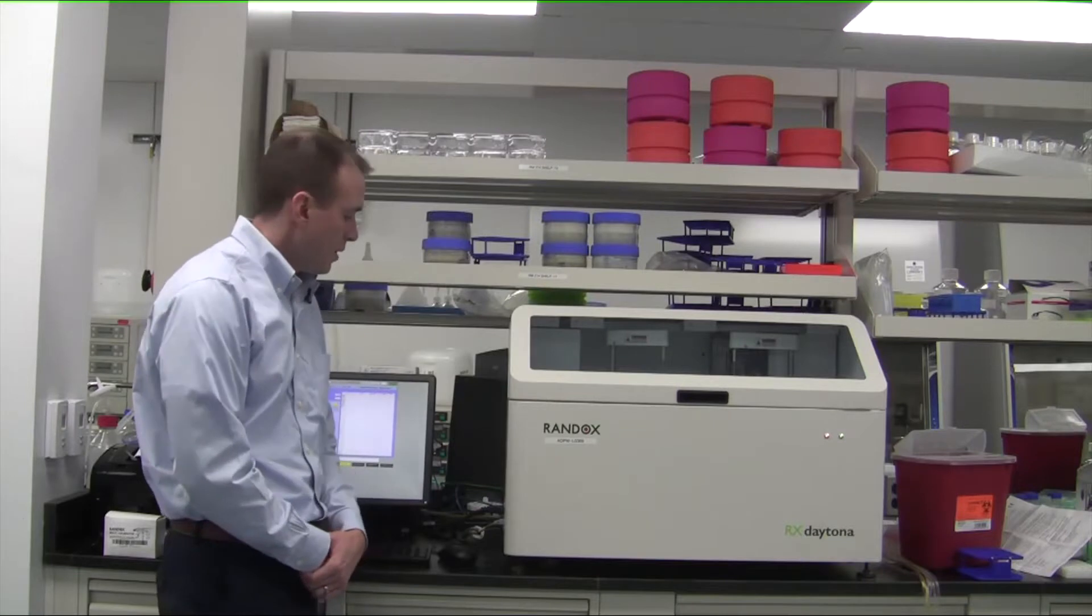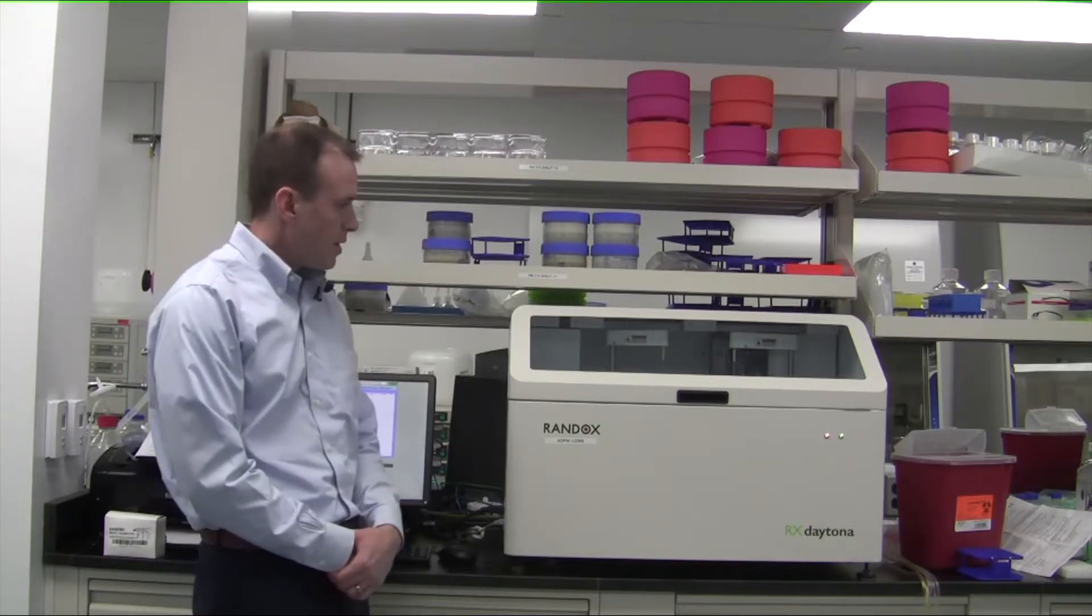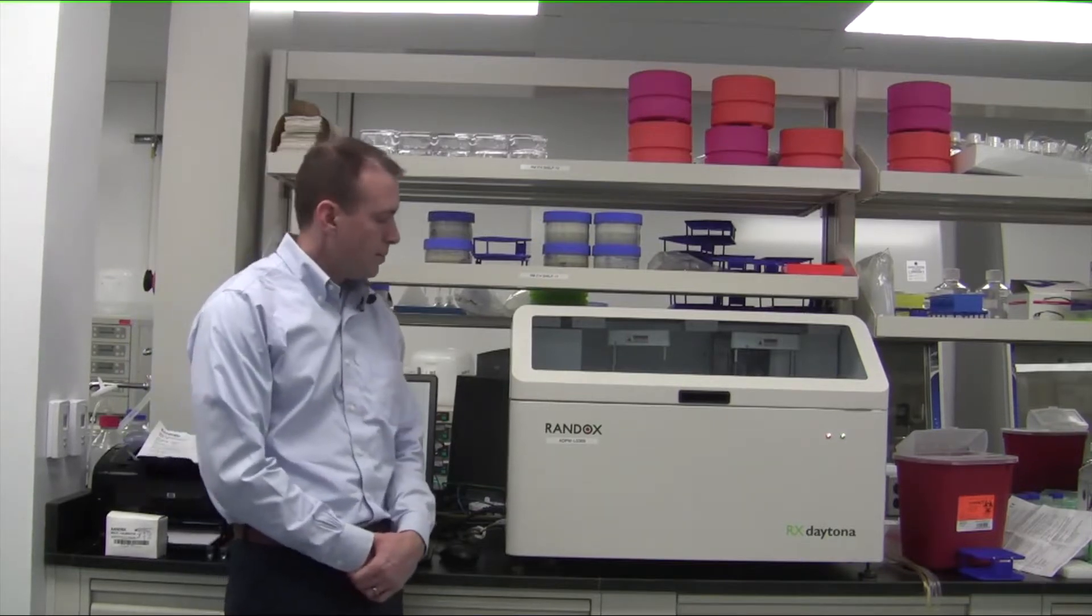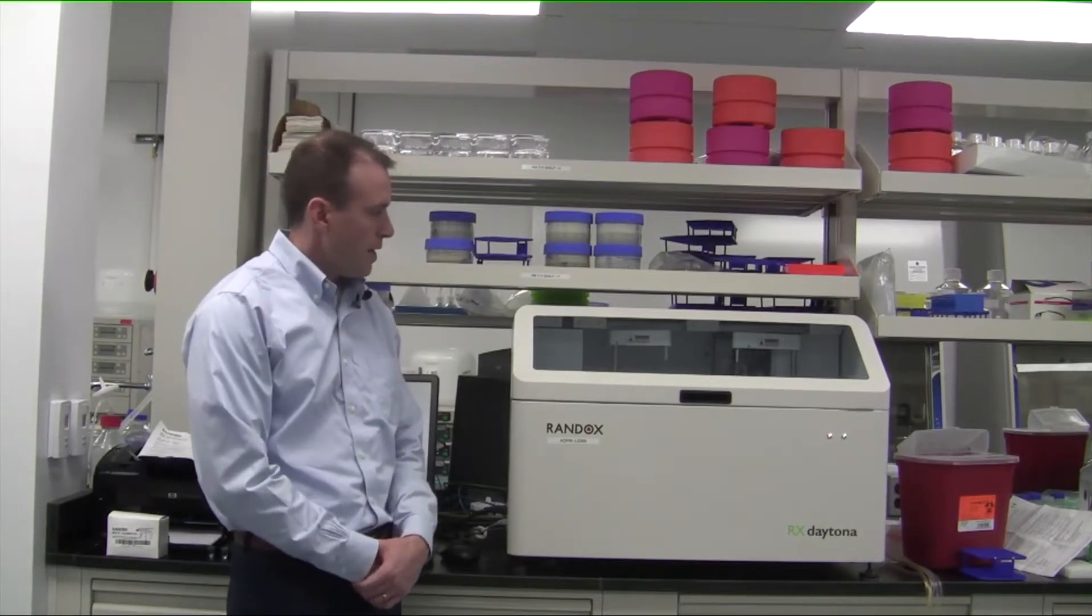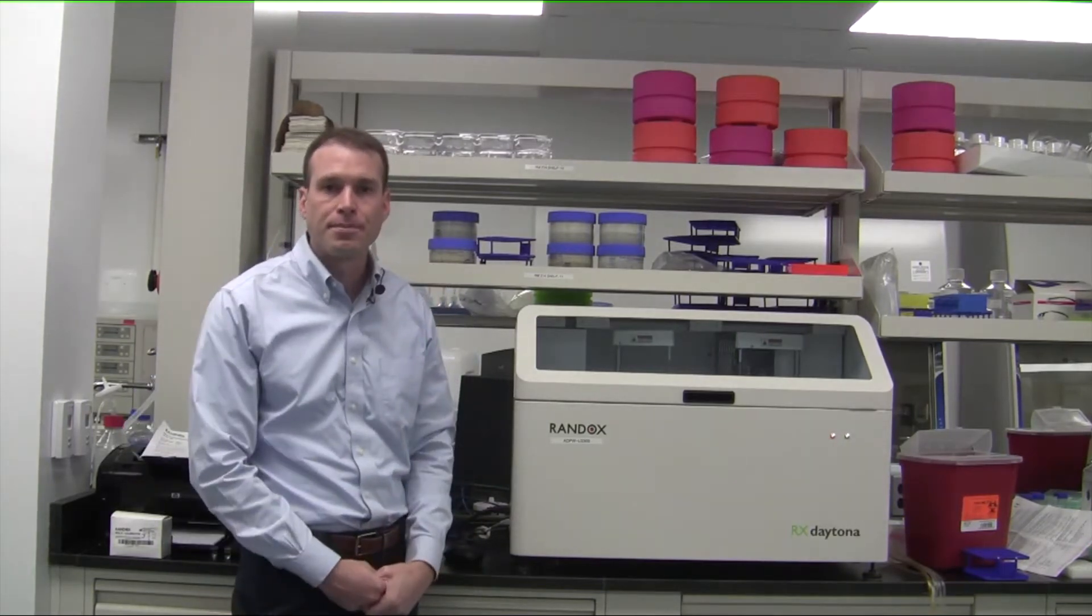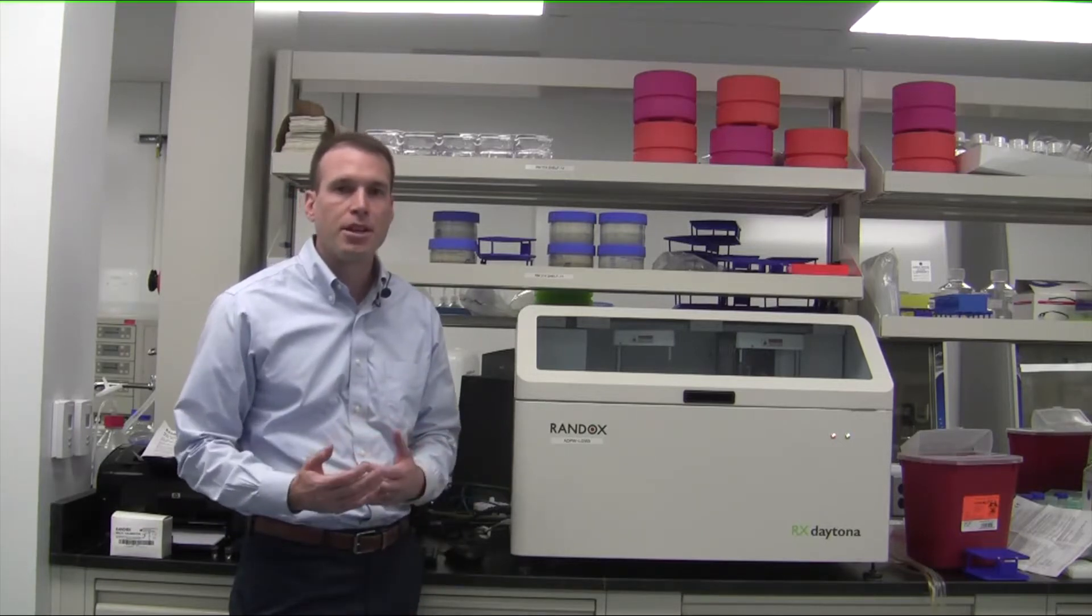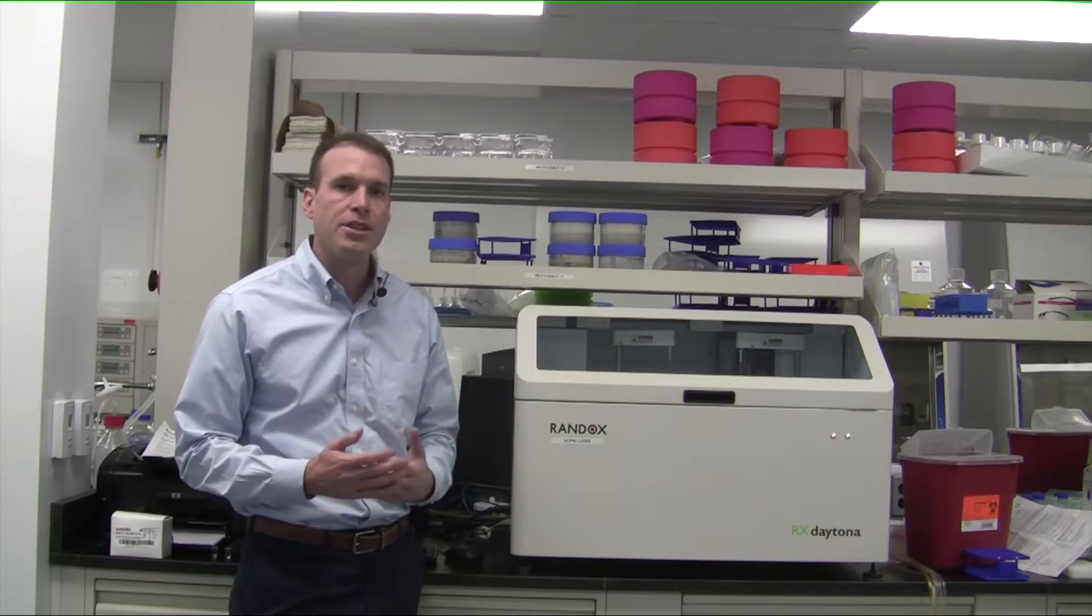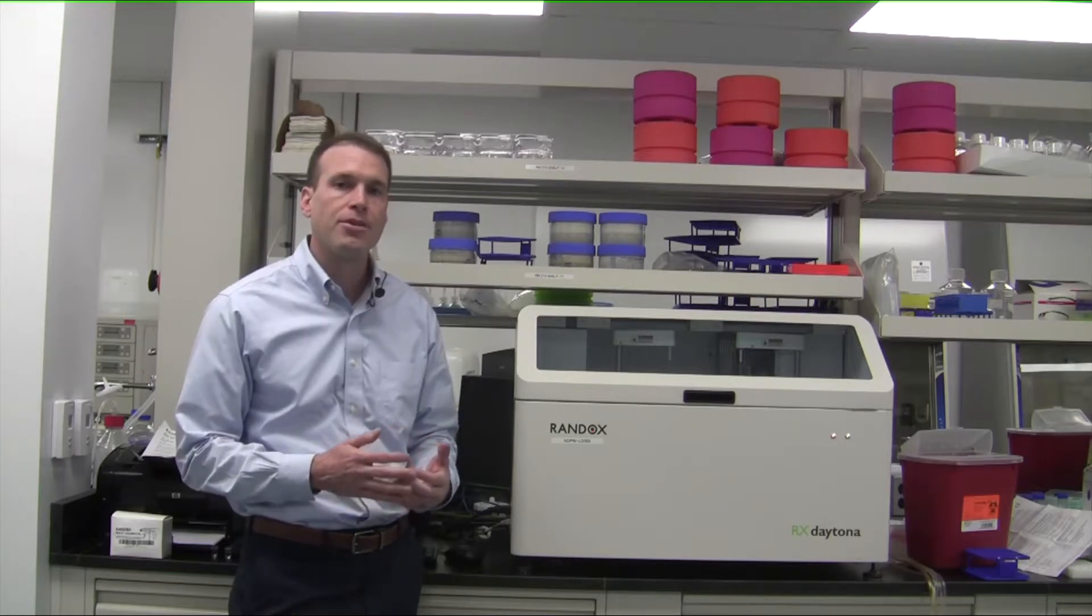These are analyzers that are optically based, and because they are optical they are doing a measurement that is very accurate and very repeatable. The measurement is essentially pipetting a little bit of sample into a cuvette, pipetting a little bit of a reagent into a cuvette. The reagent is specific for each metabolite.